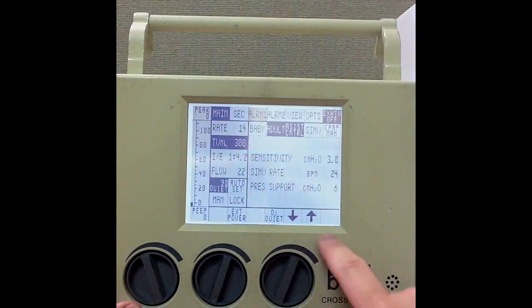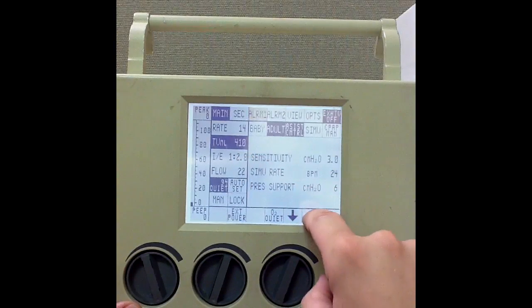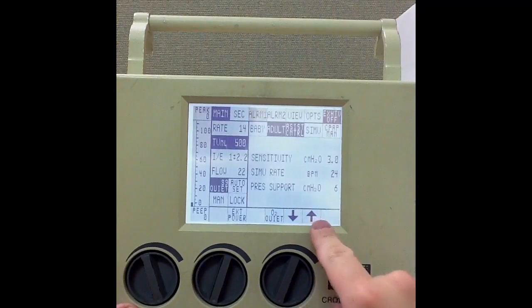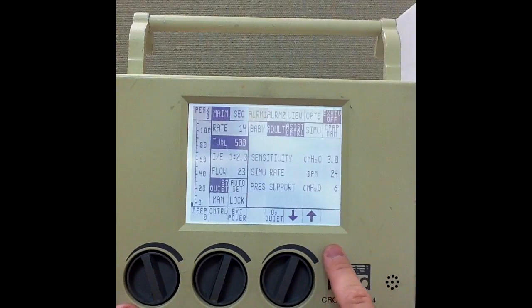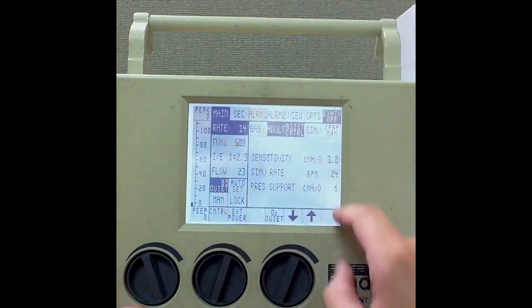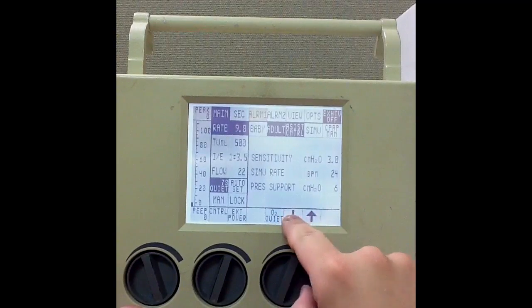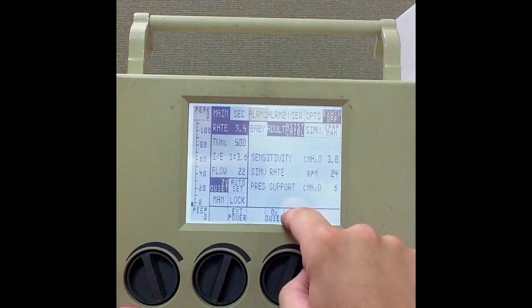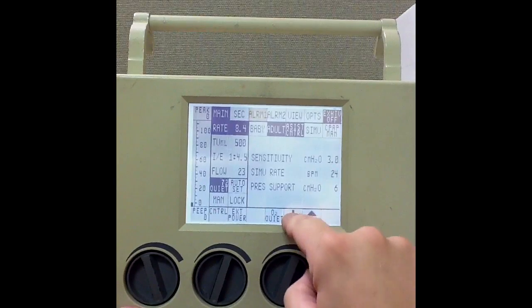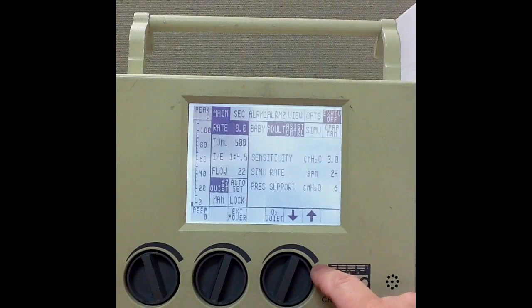I want my tidal volume to be 500 milliliters, so I'll go ahead and select tidal volume and use the up arrow here, and that will bring me up to 500 milliliters. I want my mandatory rate to be 8 breaths a minute, so I'll select rate and go down. Almost there — 8 breaths a minute.